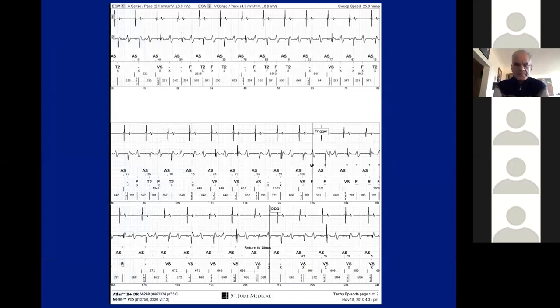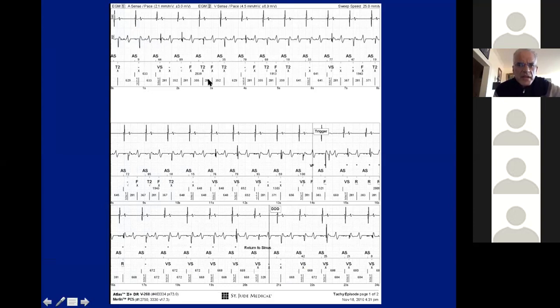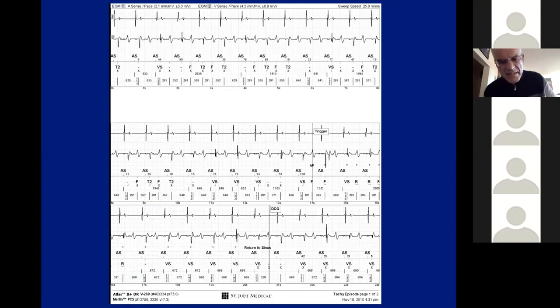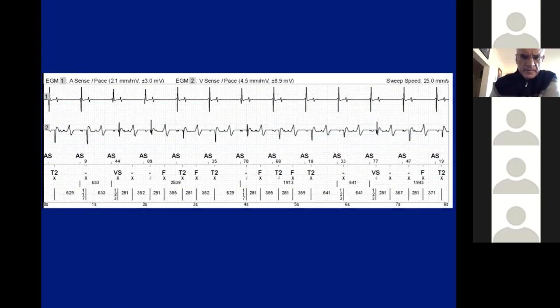Here is another example of noise or false detection. This is a dual-chamber electrogram — atrium on top, ventricular next to it, markers, and device annotation. The device is showing a ventricular sense marker, then another marker below. No morphology match (X) and then a morphology match, then another marker corresponding to the T-wave. This is T-wave oversensing — that's another thing that can result in inappropriate therapies. Here it is enlarged so you can see it more clearly.